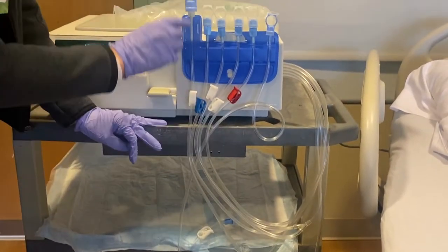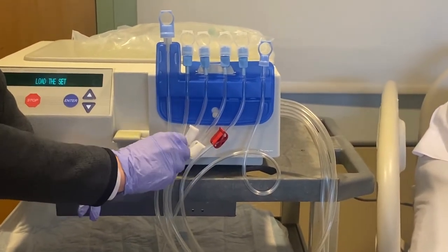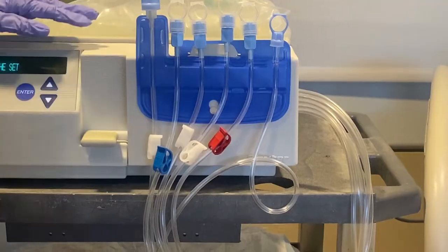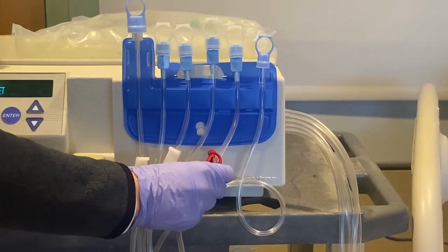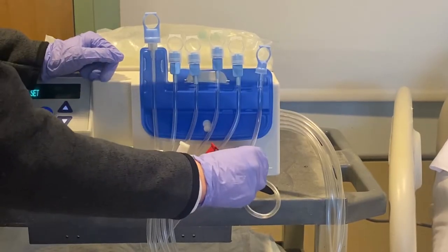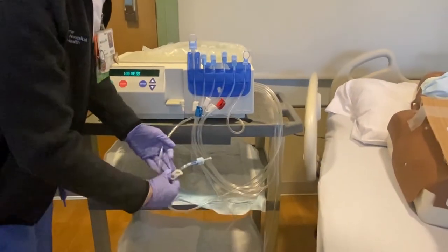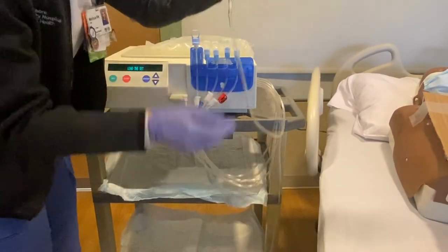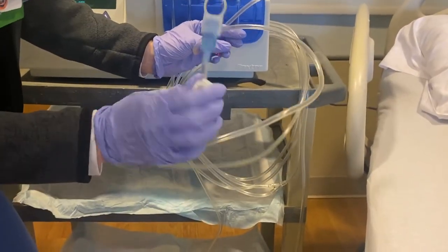Walking through the lines: the top one is connected to the patient. The blue line is for the last fill if applicable. The two in the middle are for extra dialysate bags that go down below. The red line — red is hot — goes to the top bag; it's the warmest because it's connected to the hot part of the cycler. This line is the drain line, used to drain the patient between each exchange. The small line connected to the drain is for effluent samples if needed.